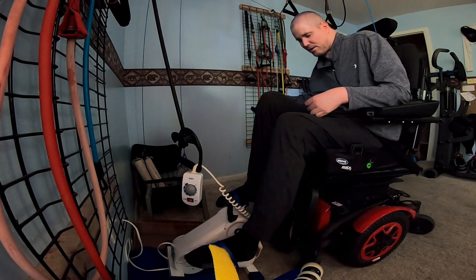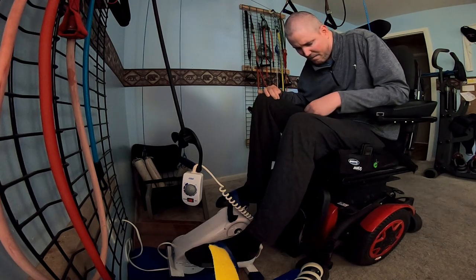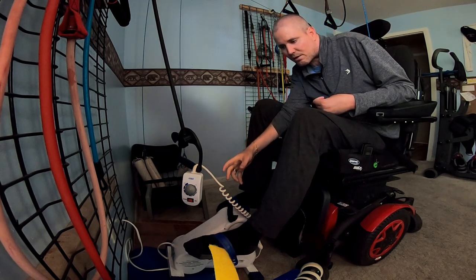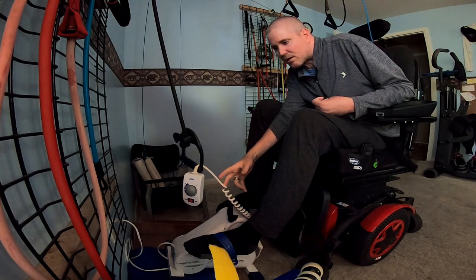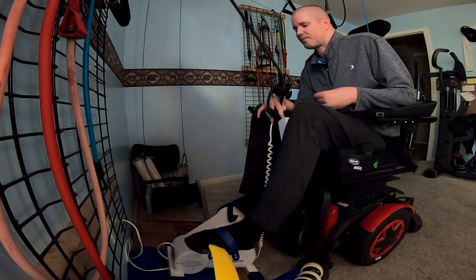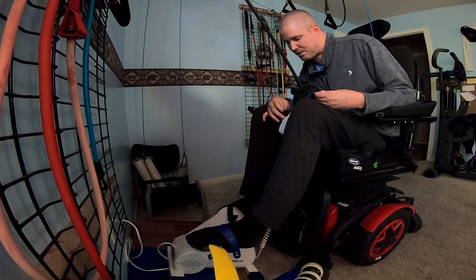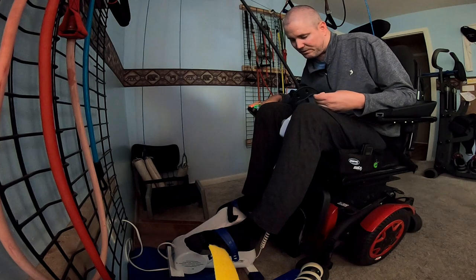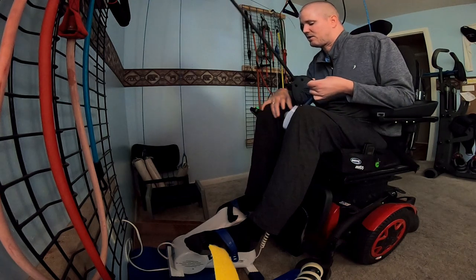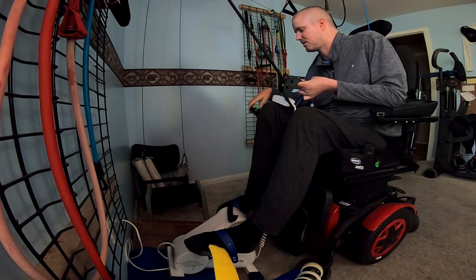So then how do I turn it on? I have to be able to reach and grab this controller that I have hanging on a handle off my exercise wall. I don't know if you can see, but if I started it right now, my left heel wouldn't hit my wheelchair. So I have to back up just a fraction. And then you make sure it's on low before you start to see how everything's gonna go.